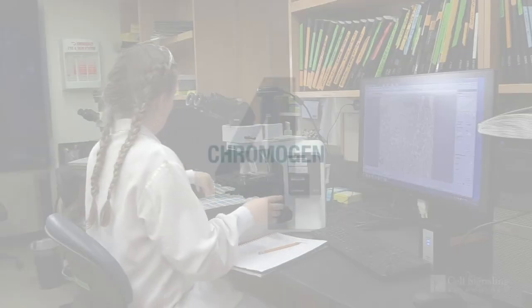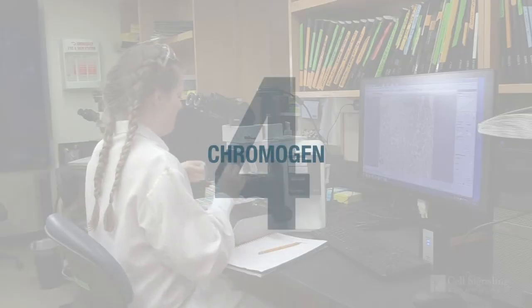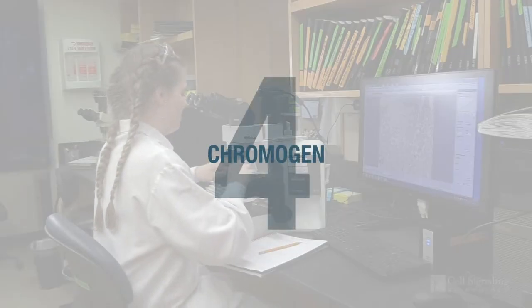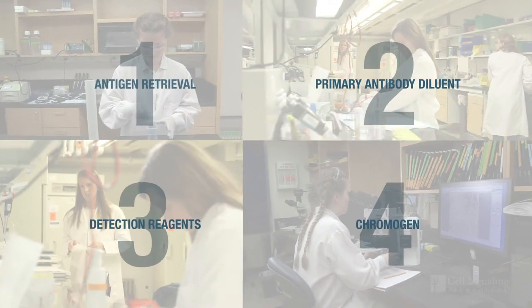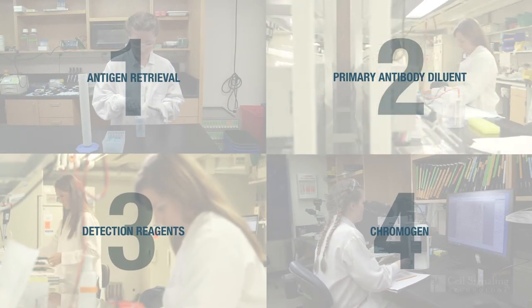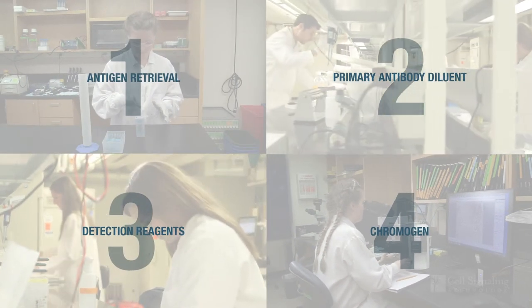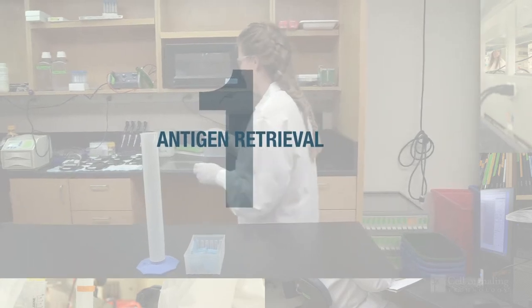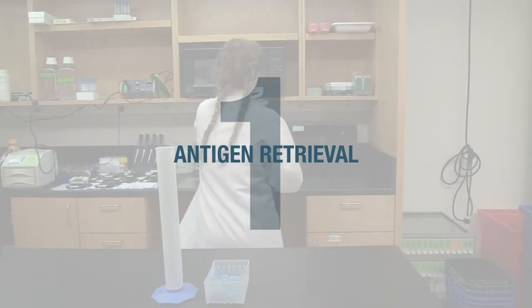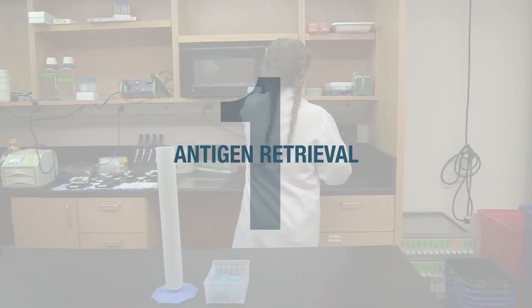And as an example, we will describe our experience optimizing the protocol for one of our antibodies. Let's get started. Step one: antigen retrieval.